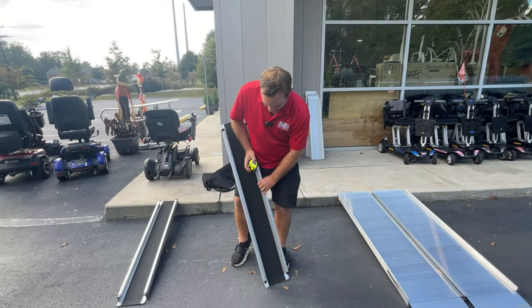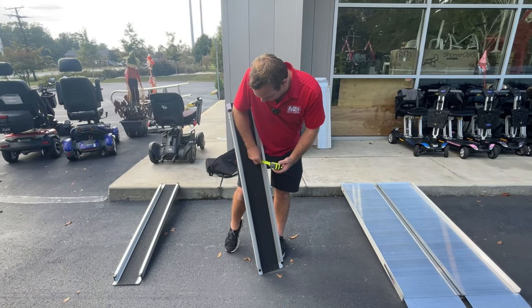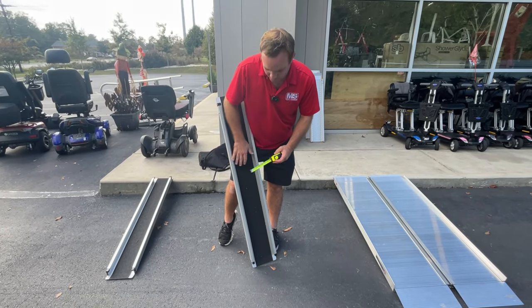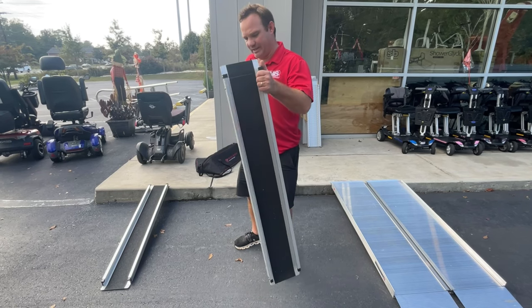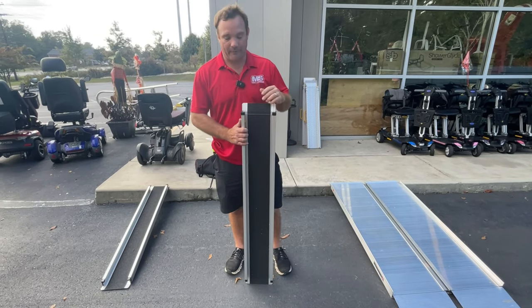This tread right here is about two inches — less than two inches, about one and three-fourths — and a cross inside here is about six inches. So you need to make sure that your chair will fit on something like this. If you have a portable chair that folds up, that should work. These are really cool and the quality is nice. I'm going to show you a cheaper version.